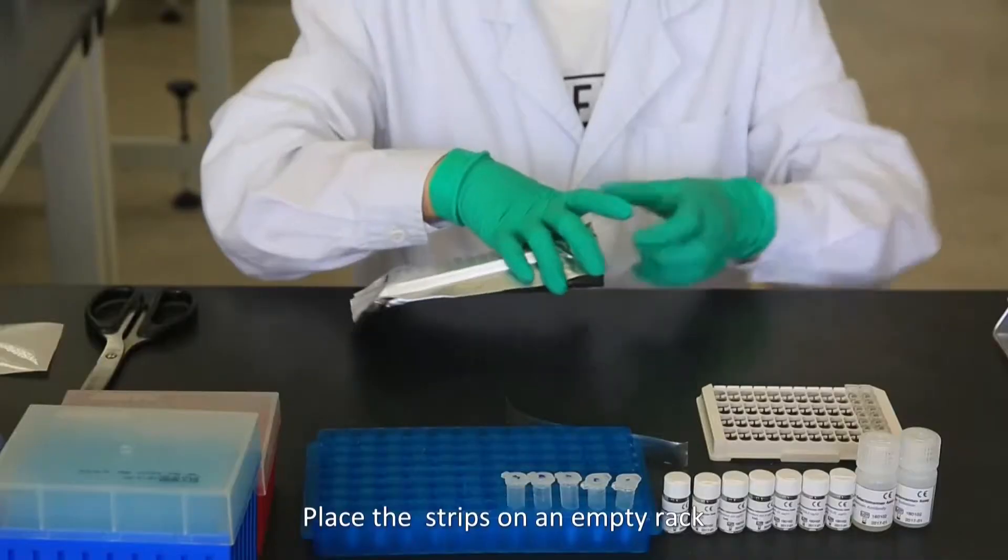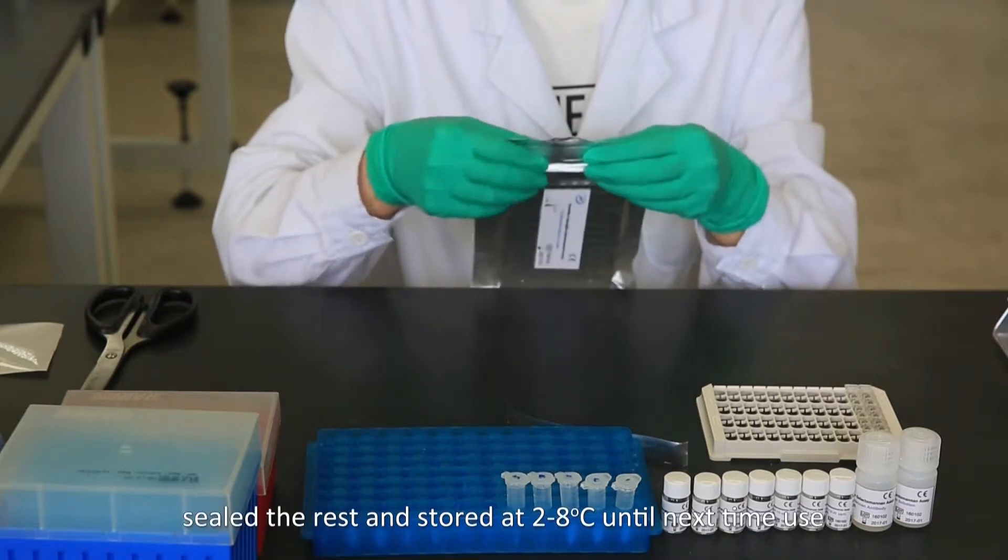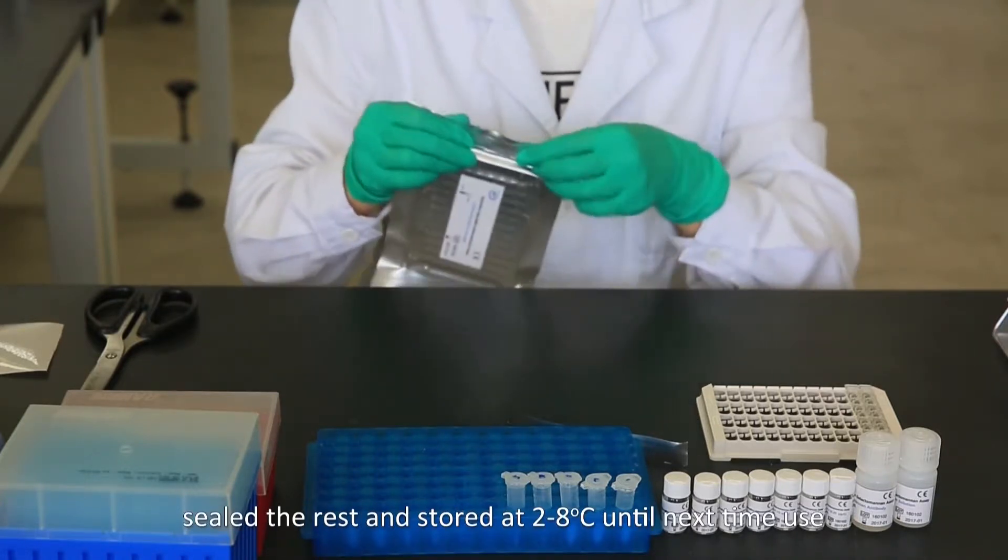Place the strips on an empty rack, seal the rest and store at 2-8 Celsius until next time used.